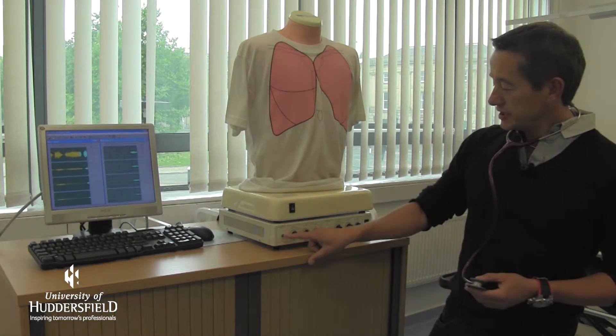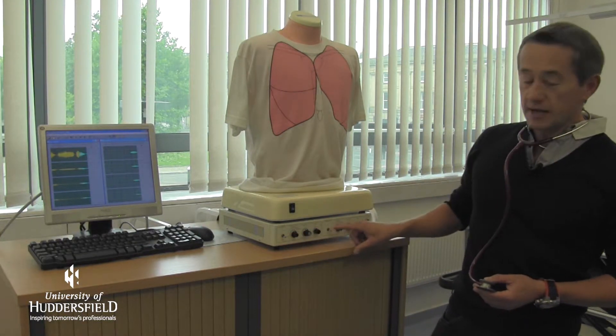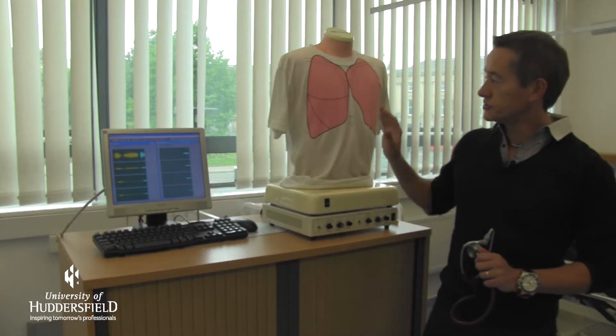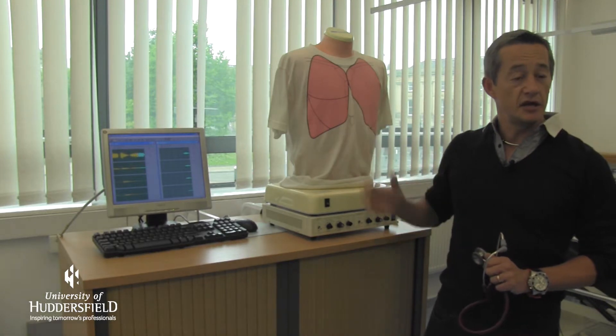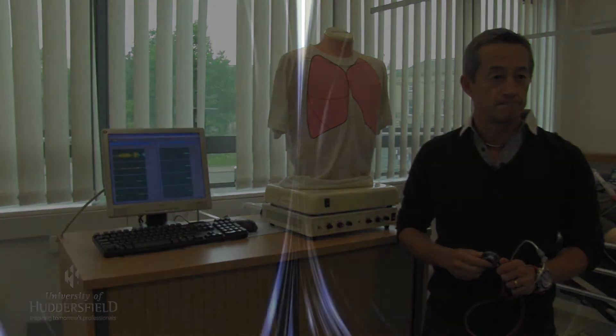Now the whole point of being able to demonstrate this is for the student to understand physiologically what's happening with that wheeze, what's actually causing it, and in a patient what would we do. So they get a real opportunity to practice using realistic kits that they're using at a healthcare setting and also to listen to realistic sounds that are replicated from normal human beings.